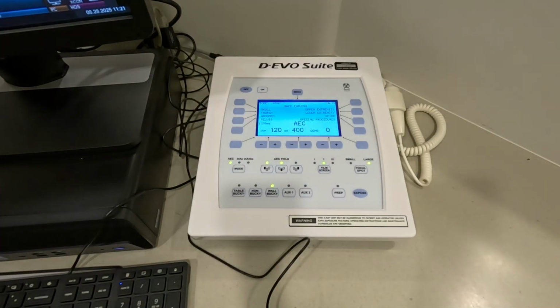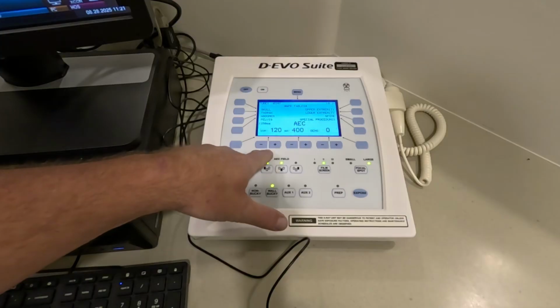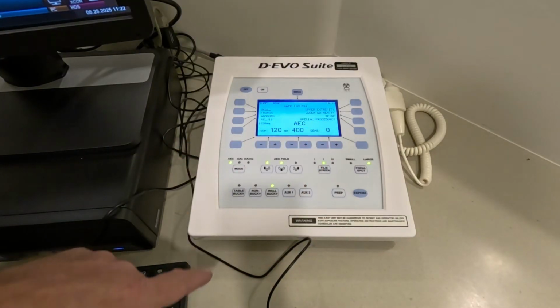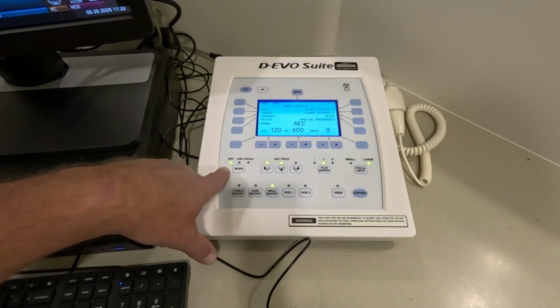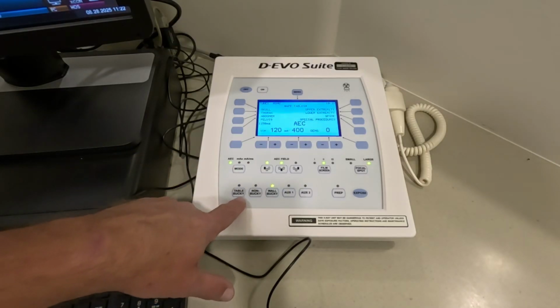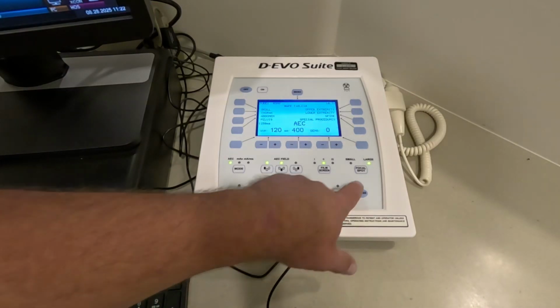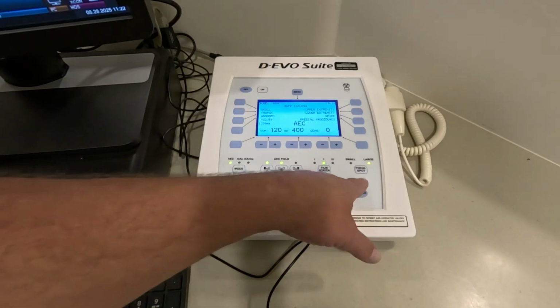One of the first things that you need to do in clinicals is to familiarize yourself with this control panel. You need to see how you can adjust kVp, how you can adjust mA, and how you can adjust time. You need to see how to turn on AEC. You need to understand where you're shooting, be it into a table bucky or wall bucky, or non-bucky, which would be a tabletop technique. You need to see how to adjust focal spot size.